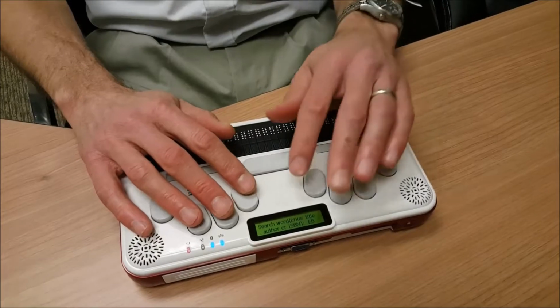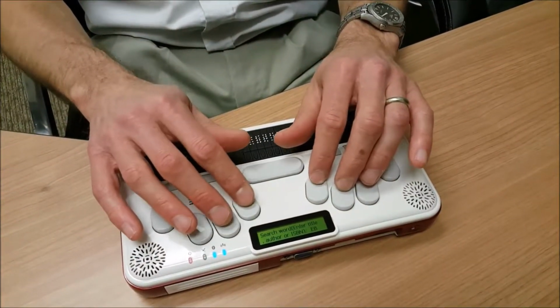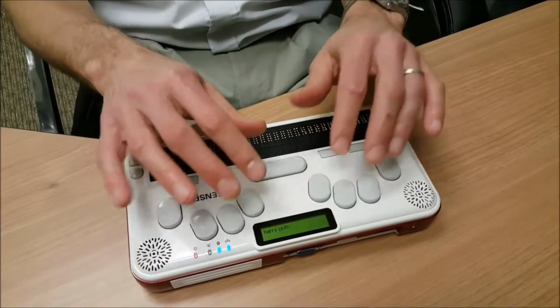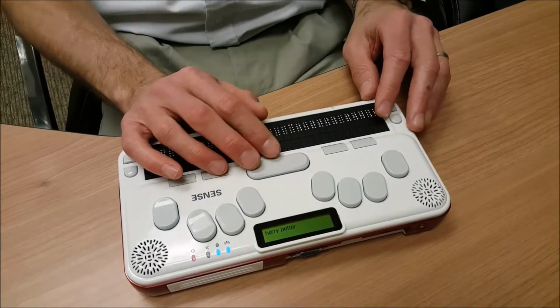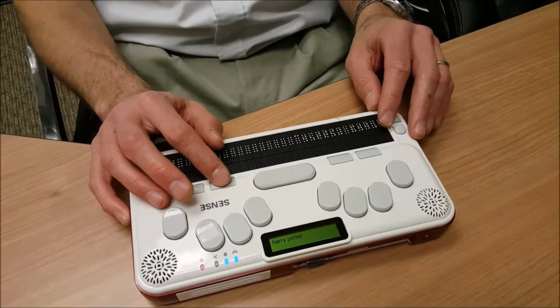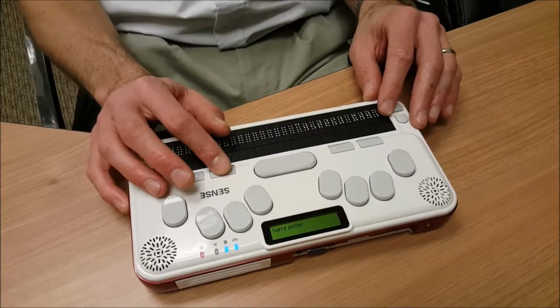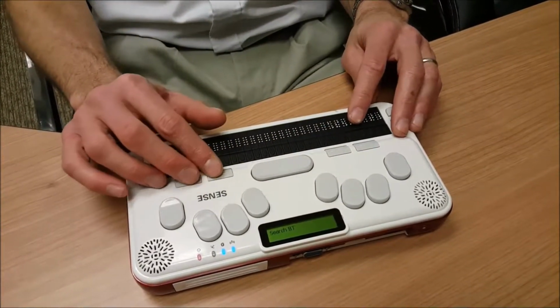Since I happen to know that there are a lot of Harry Potter books on Bookshare, no big surprise, we'll simply type in Harry Potter. And again, I do not have to use computer Braille. I can use contracted Braille if my Braille Sense is set for contracted Braille, so I can use whatever type or grade of Braille that I want. I press my function key 3 or tab key. Search button. And I get to the search button.